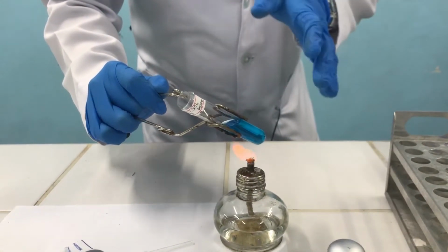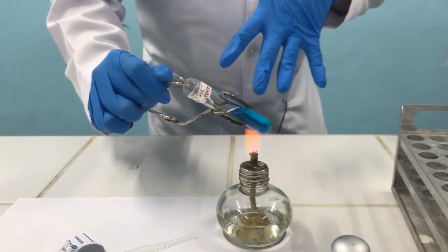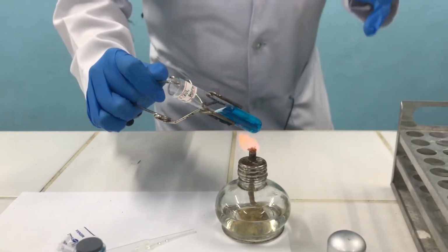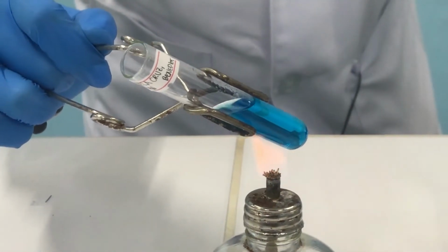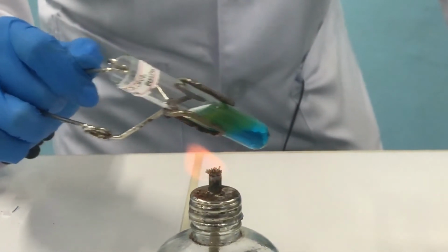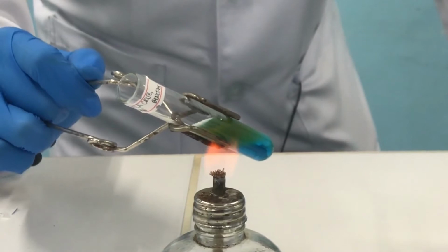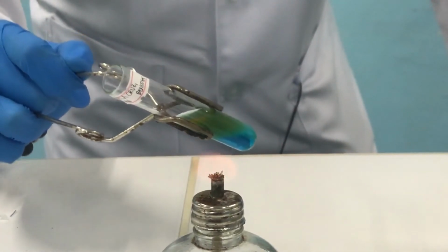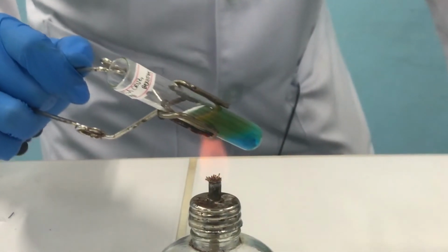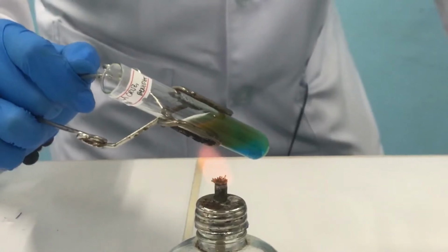For now, we'll steady the flame because if we keep on moving it, it will spurt out when it boils. So we'll just steady the flame at the middle of the tube to avoid spurting out when it comes to boiling. Here, as you can see, we're starting to form your cuprous oxide, the precipitate. Once again, if your urine has glucose, glucose will act as your reducing sugar, reducing copper to cuprous oxide. You can see the change in color from blue to a reddish or brownish precipitate. And we'll wait until it boils.